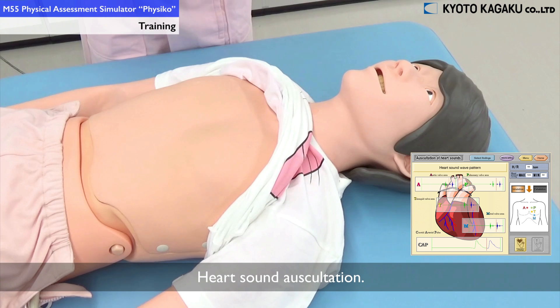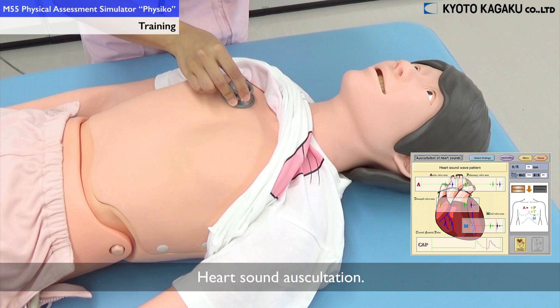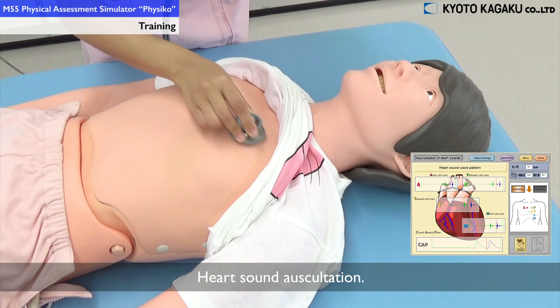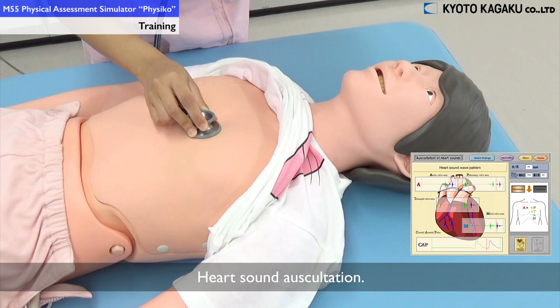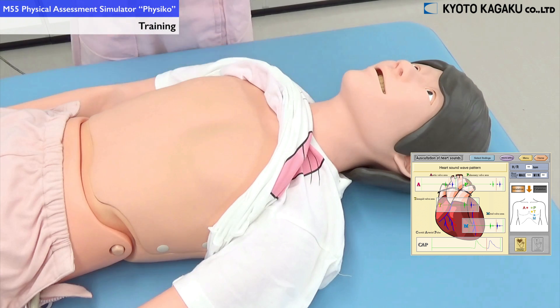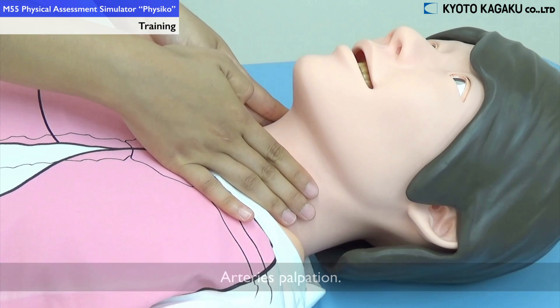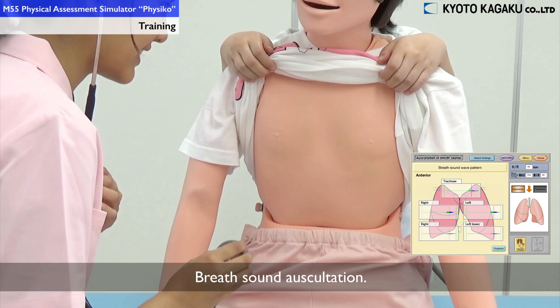You could train the heart sound auscultation as well as the lung sound auscultation.